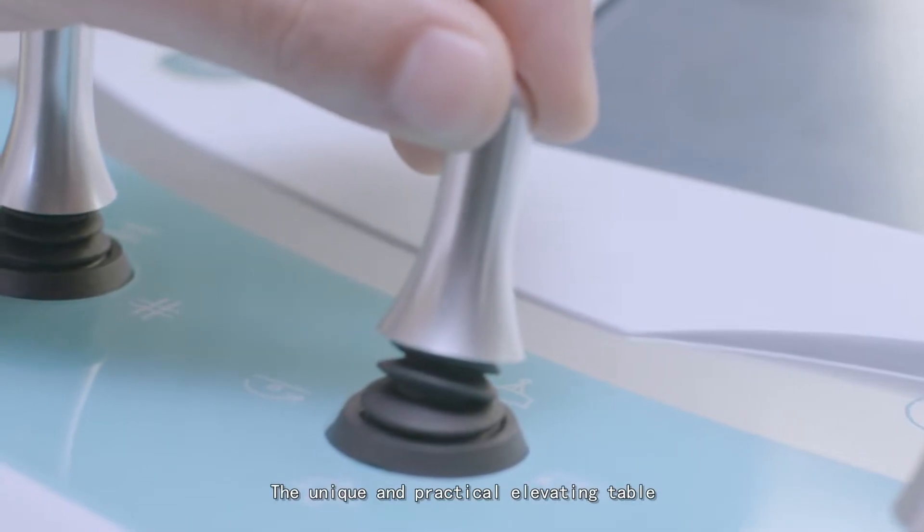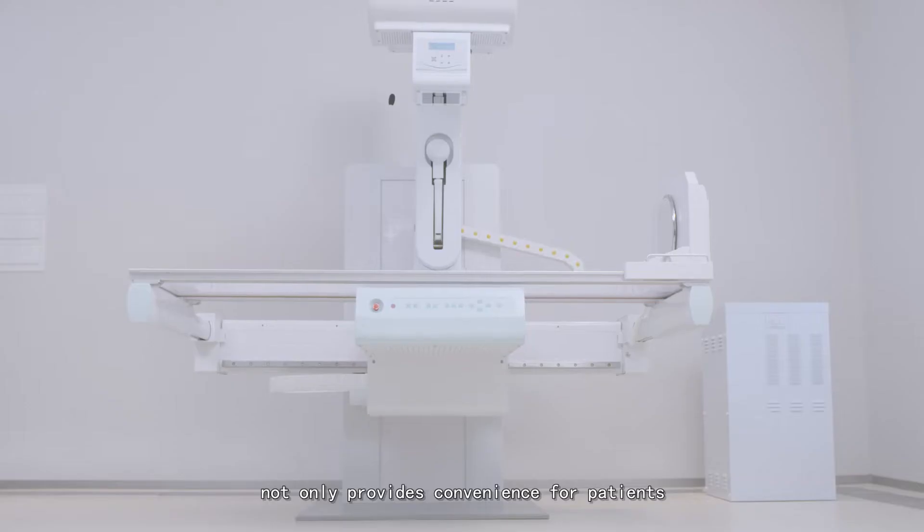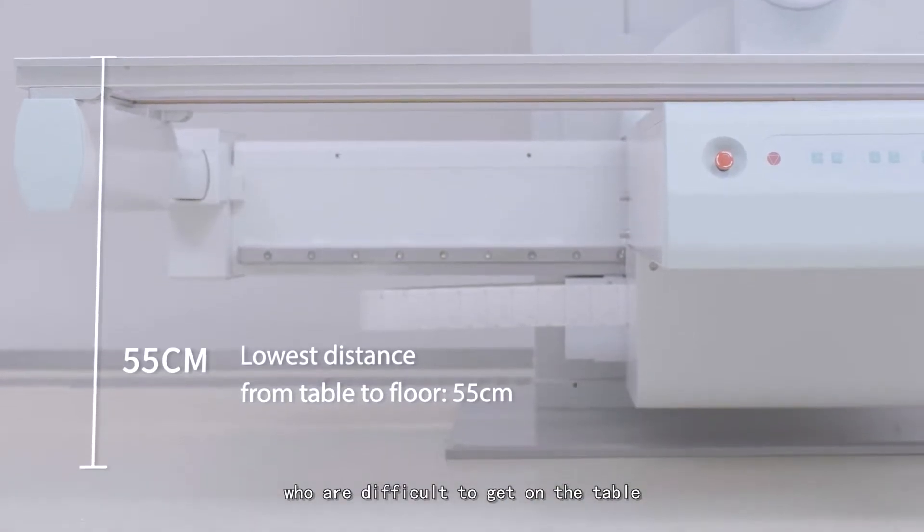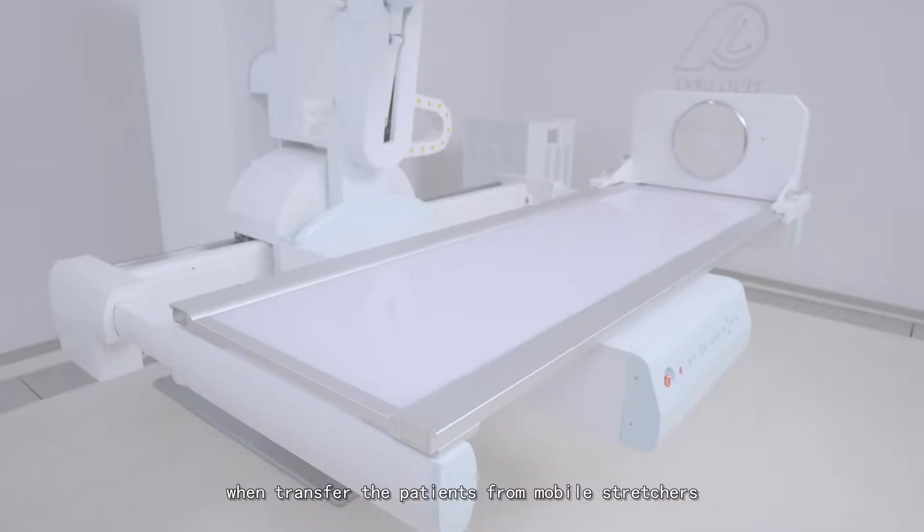The unique and practical elevating table not only provides convenience for patients who are difficult to get on the table, but also can avoid secondary injuries when transferring patients from mobile stretchers.